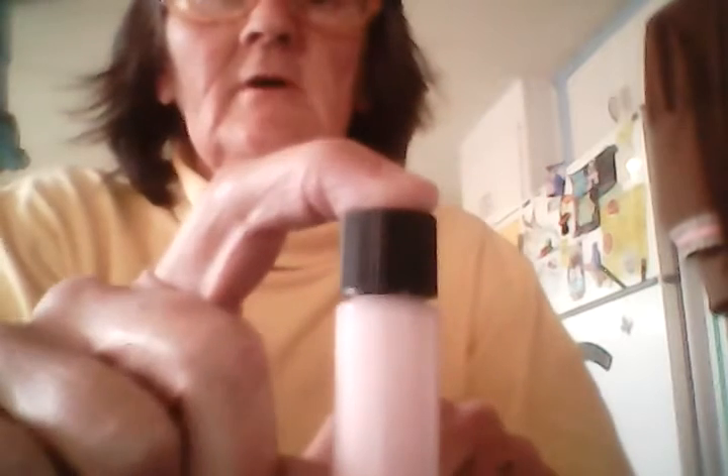I'm going to try to reline my dentures at home with this kit I ordered from a catalog. It came with two little bottles. One bottle I put in the icebox because it said to chill that bottle of liquid for one hour before I do this. I've got 30 more minutes, and I washed my dentures real good and got them dry sitting over here waiting.